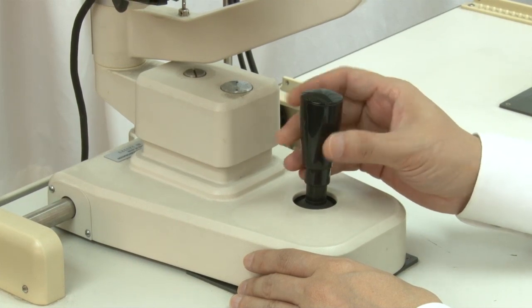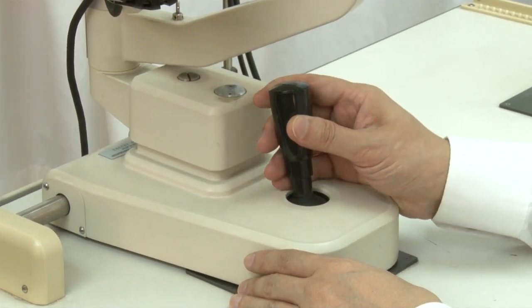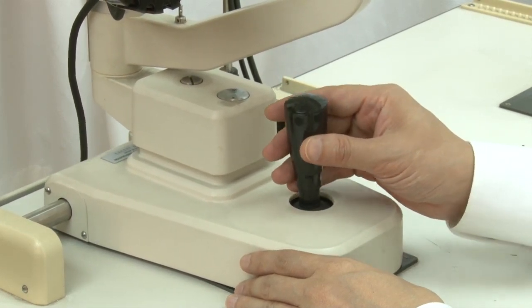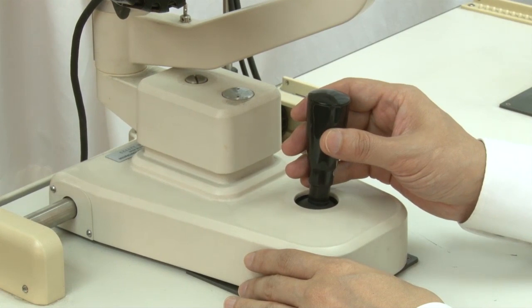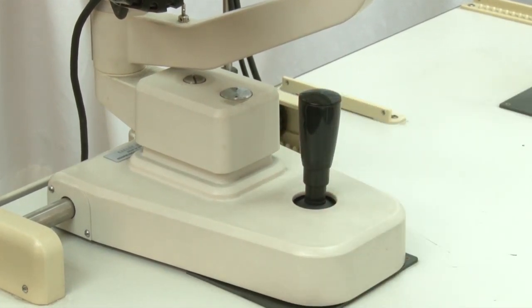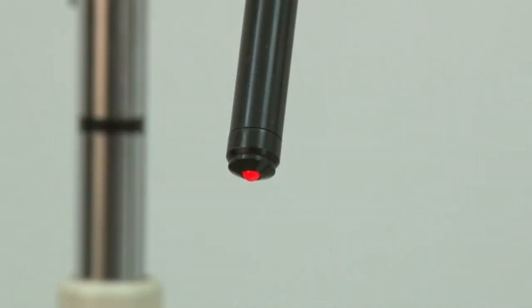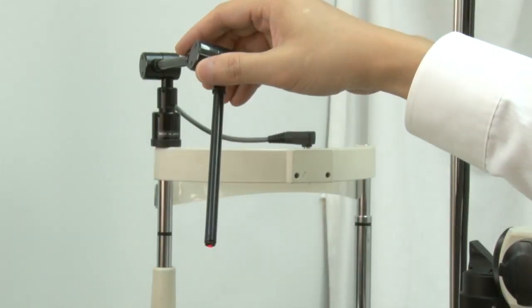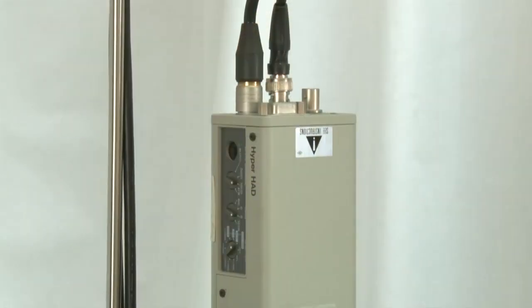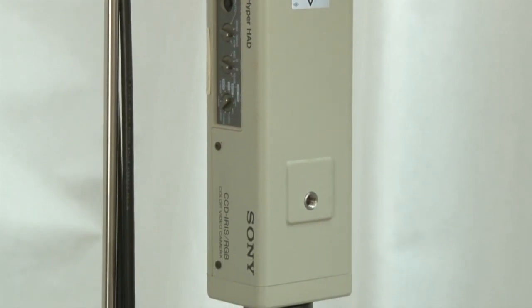Both systems are joined on a movable platform with a joystick that controls vertical, forward, backward, and right-left adjustment. Attached to the top of the headrest is a fixation rod to guide the eye gaze position. Modern slit lamps also allow for ocular photography and video photography.